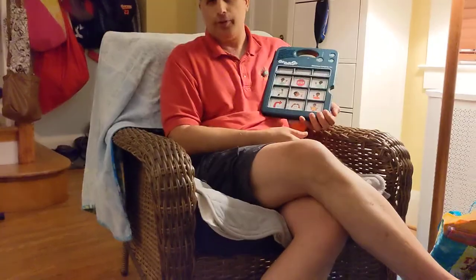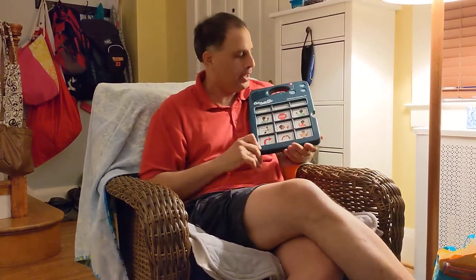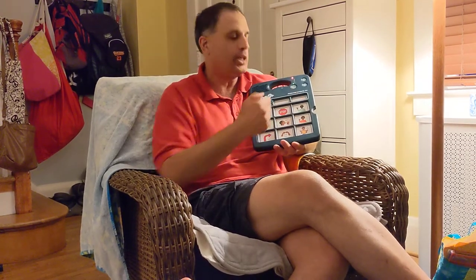Suppose I wanted a different voice — I wanted to use a different person's voice on these. I could record them all at once, putting in new messages. I'm going to show you that you can do them all at once. So I'm going to go back and press the record button. It's red now, so it's ready for me to record. I'm going to go to each button, press and release it, speak the new message, and then press it again to stop recording. And I can do several buttons that way.